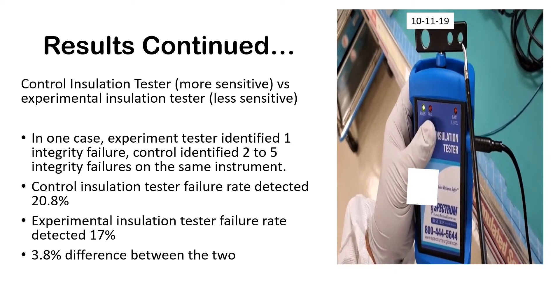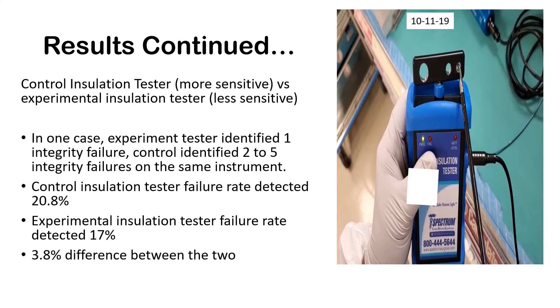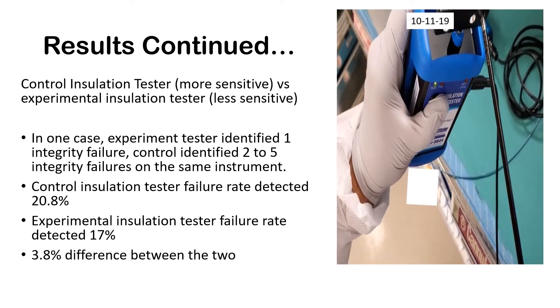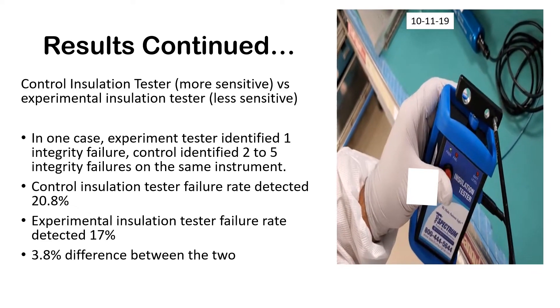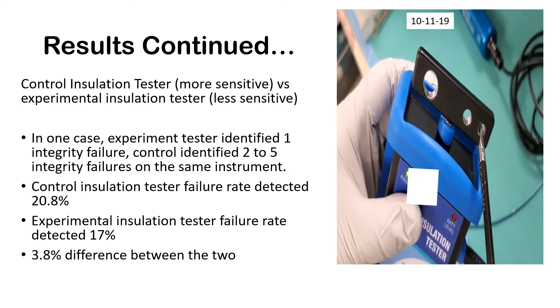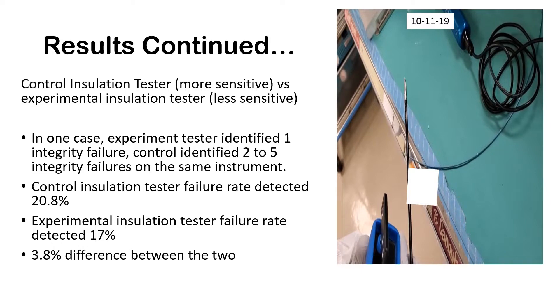With this unit here, a brand new battery was replaced, and with the metal exposed already, the unit should be going off. But with my finger completely on the button, it's still not going off — so there is something wrong with this unit. You've got to be flat against the button. You can see it wasn't working, and we don't even know how long that had been going on. I've been in other cases where the battery had enough juice to put the lights on, but it wasn't enough to actually test.